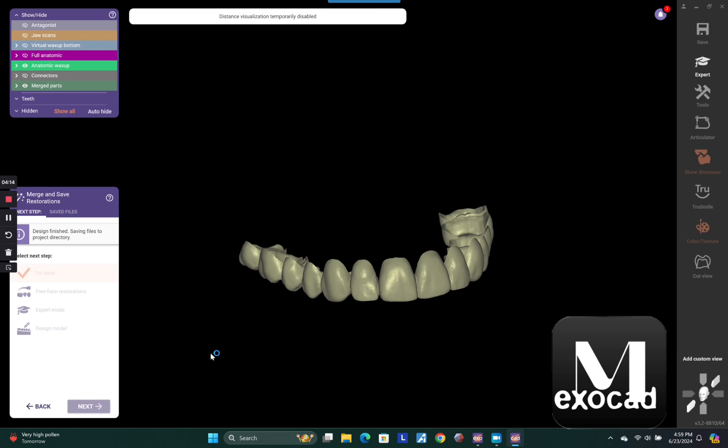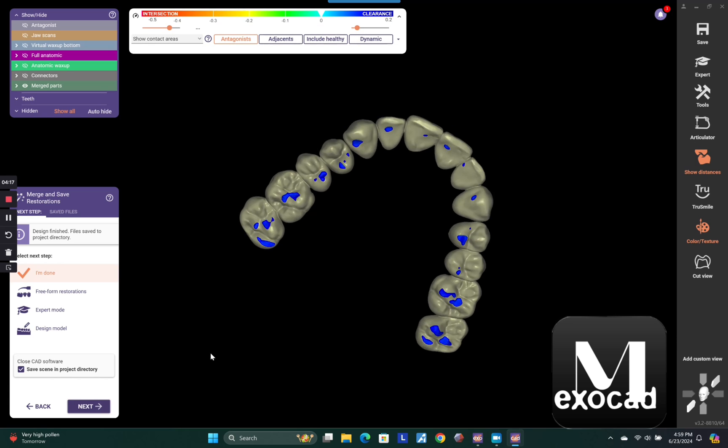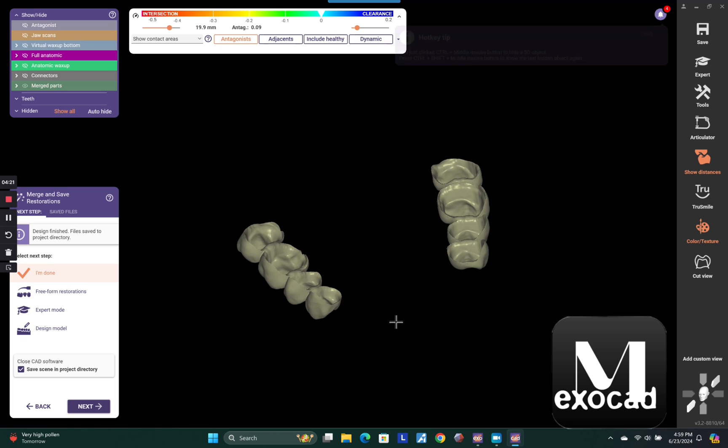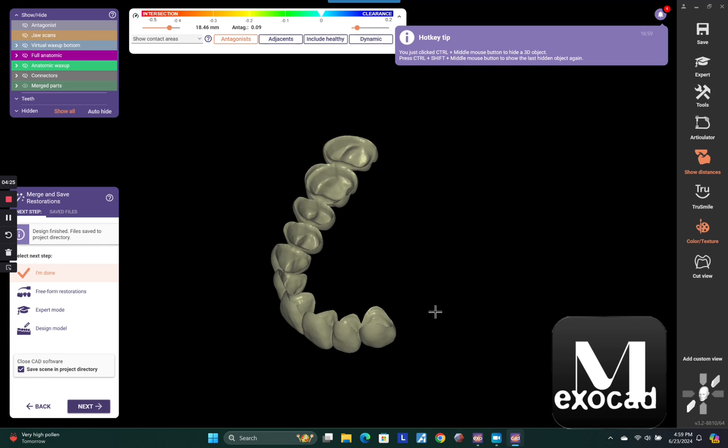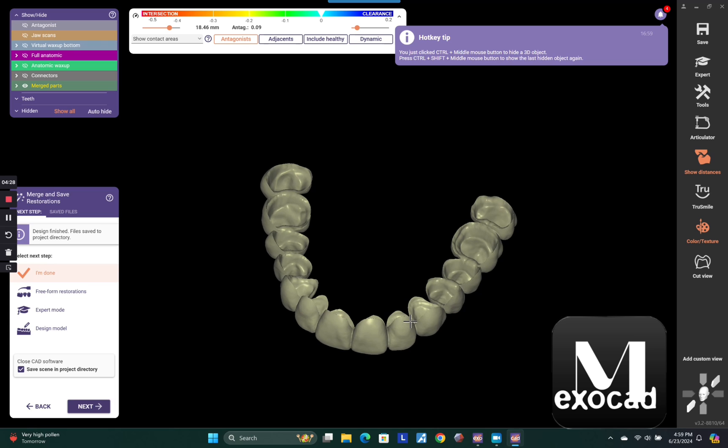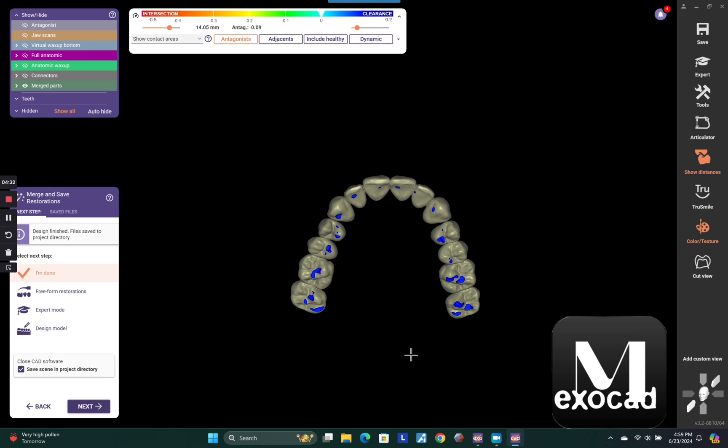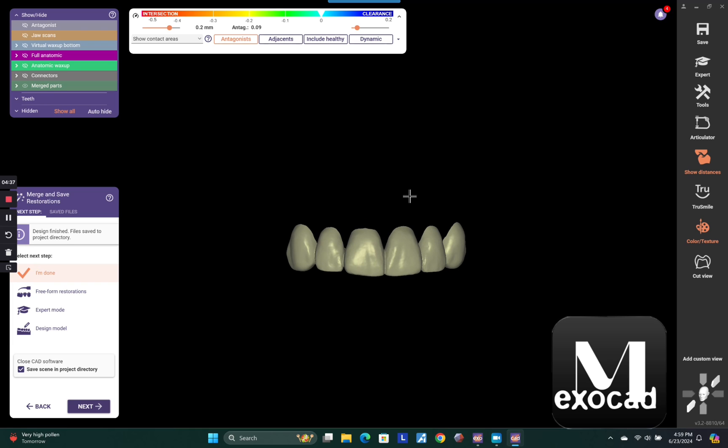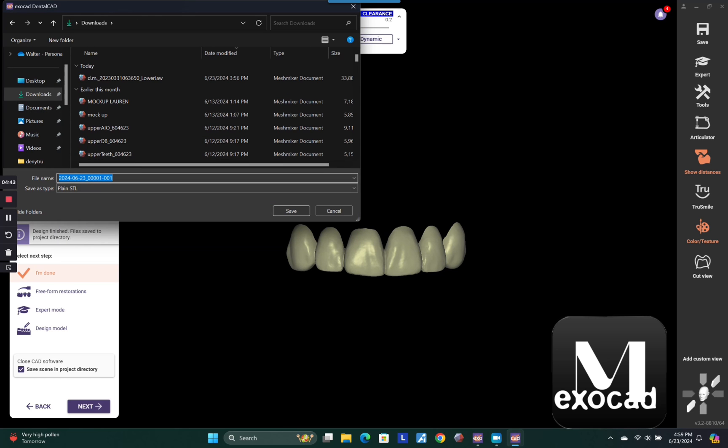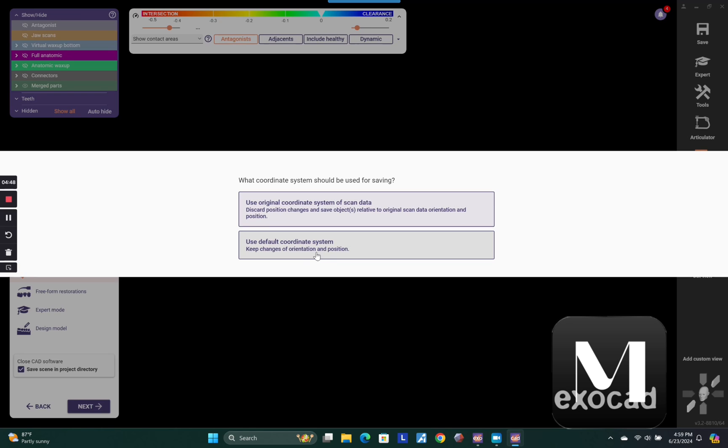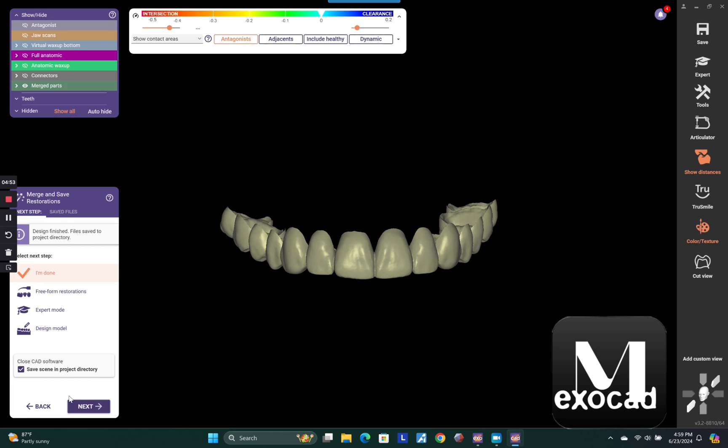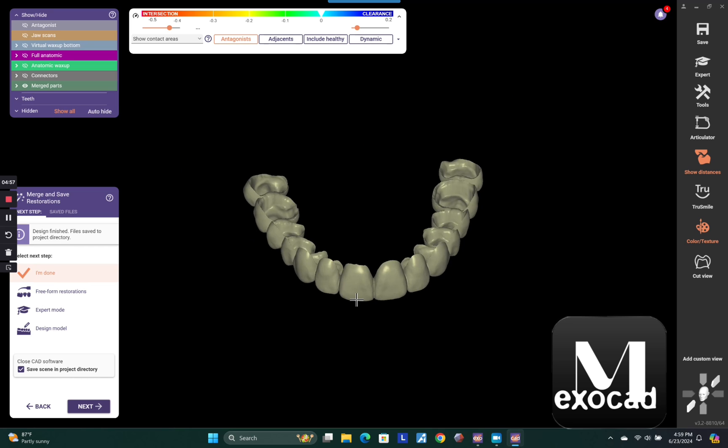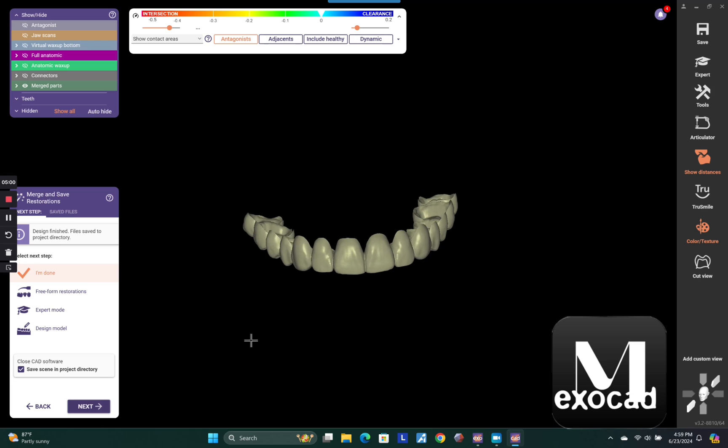So you're going to hit next. And here is the merge part that you 3D print. Now you could decide whether you want to print the whole thing together. You could right click, save scene as, and export the whole thing. But I designed these in the setup tab with connectors everywhere except distal to the canine. So I have three units and I could print three separate units. Now, if I wanted to, I could export these right here or ExoCAD automatically saves this in the project folder as a CAD file. But here I'm just going to right click, save scene as, export as a plain STL, call it anterior segment, save it somewhere you could remember. And I'm going to go ahead and visible objects only, yes, and default coordinate system.